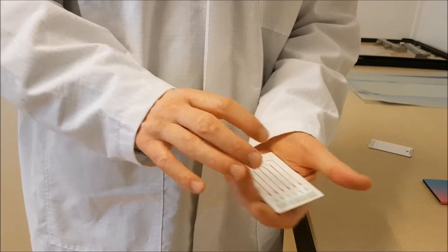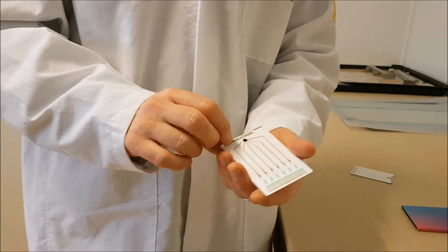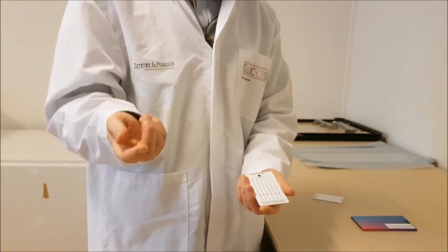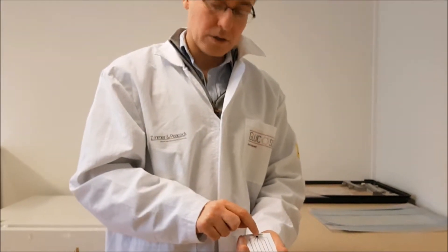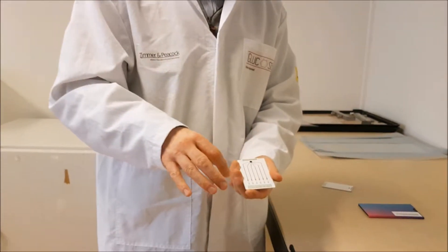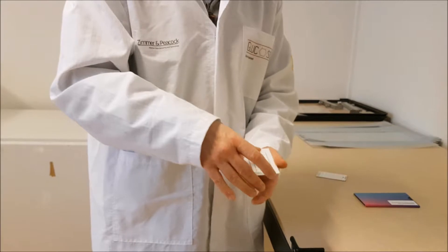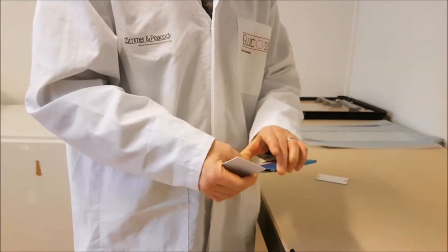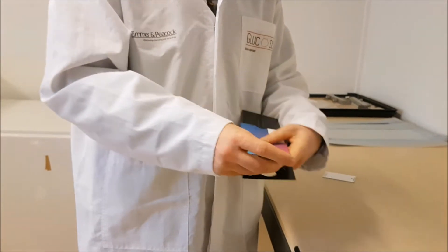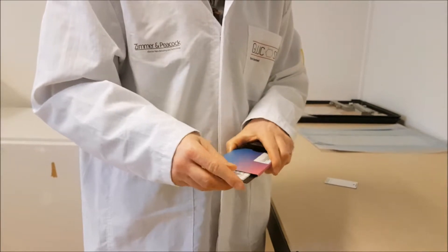So it's built on a credit card platform for low cost. The idea is we'll prick a finger, put a drop of blood on the target, that will wick down to the sensors and then we're able to make a medical diagnostic determination of what's in the analyte.